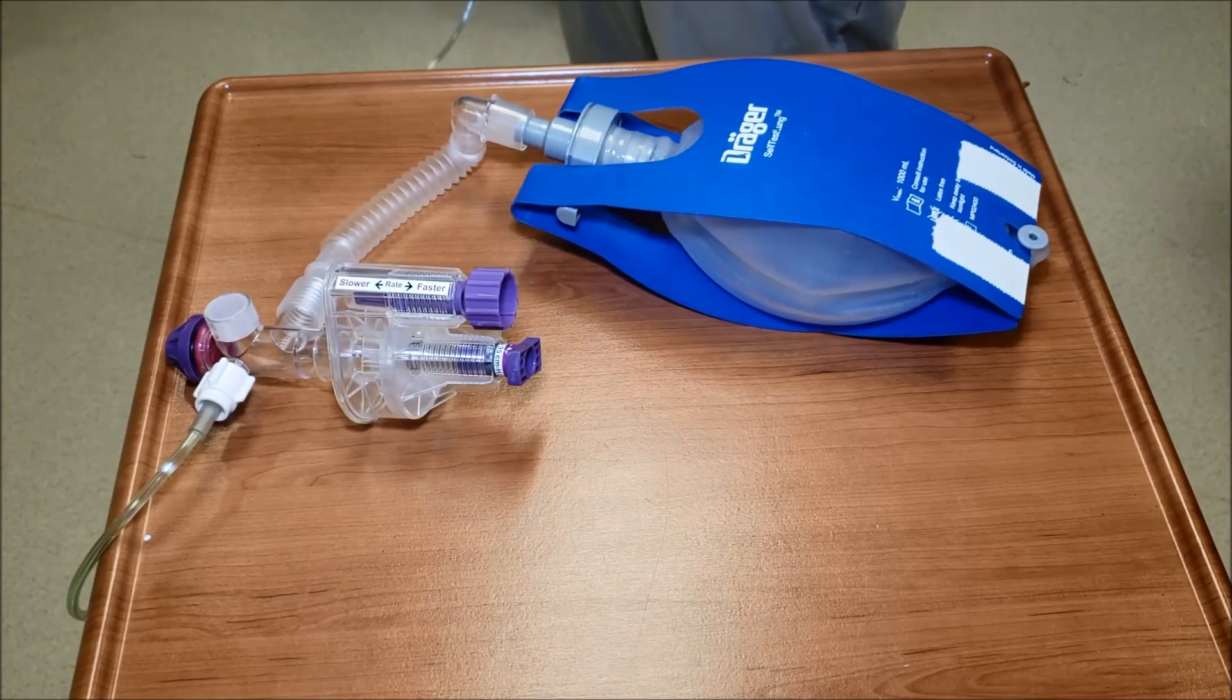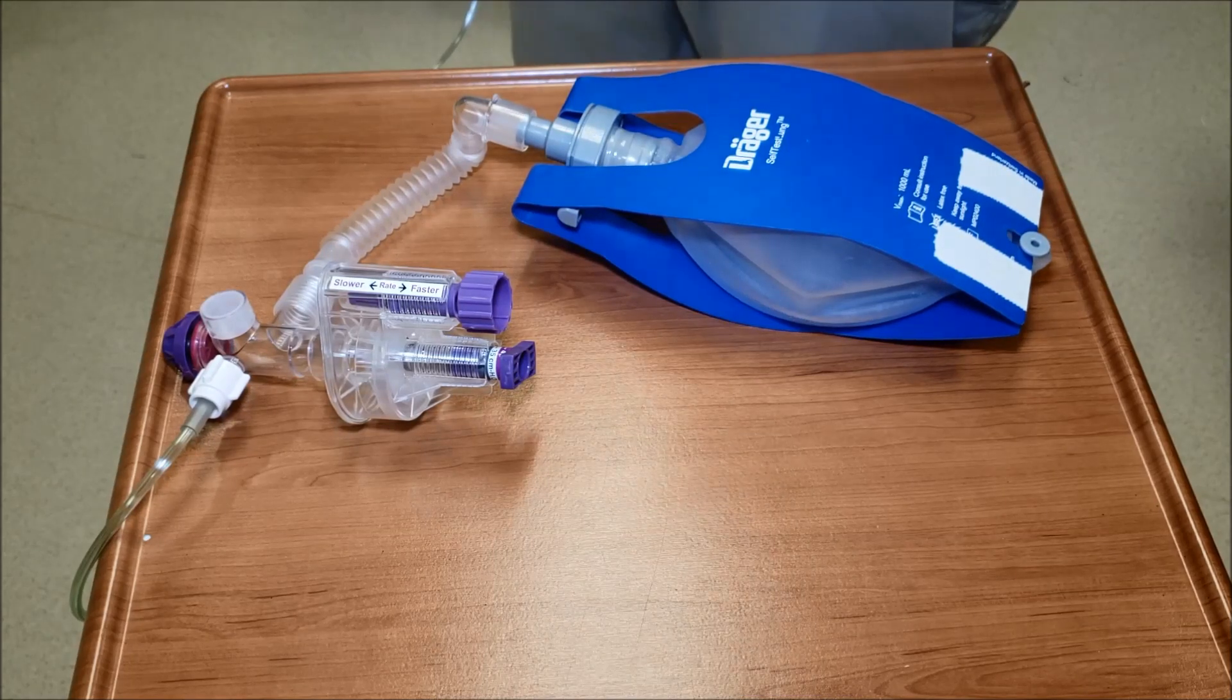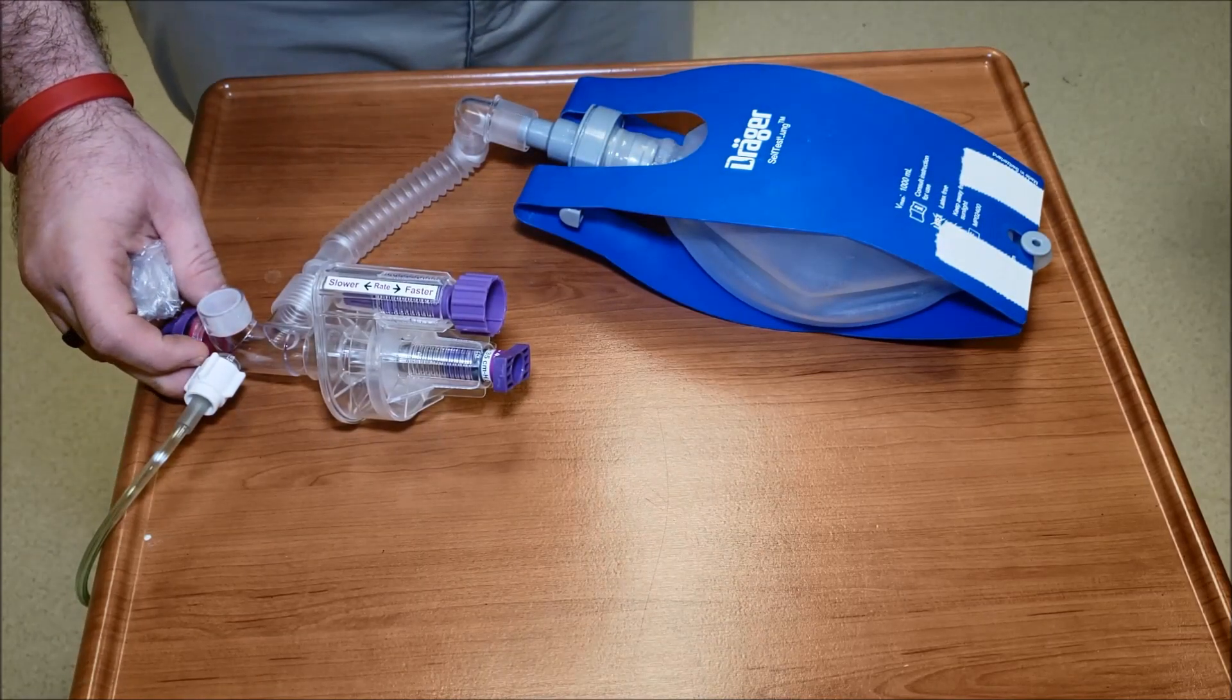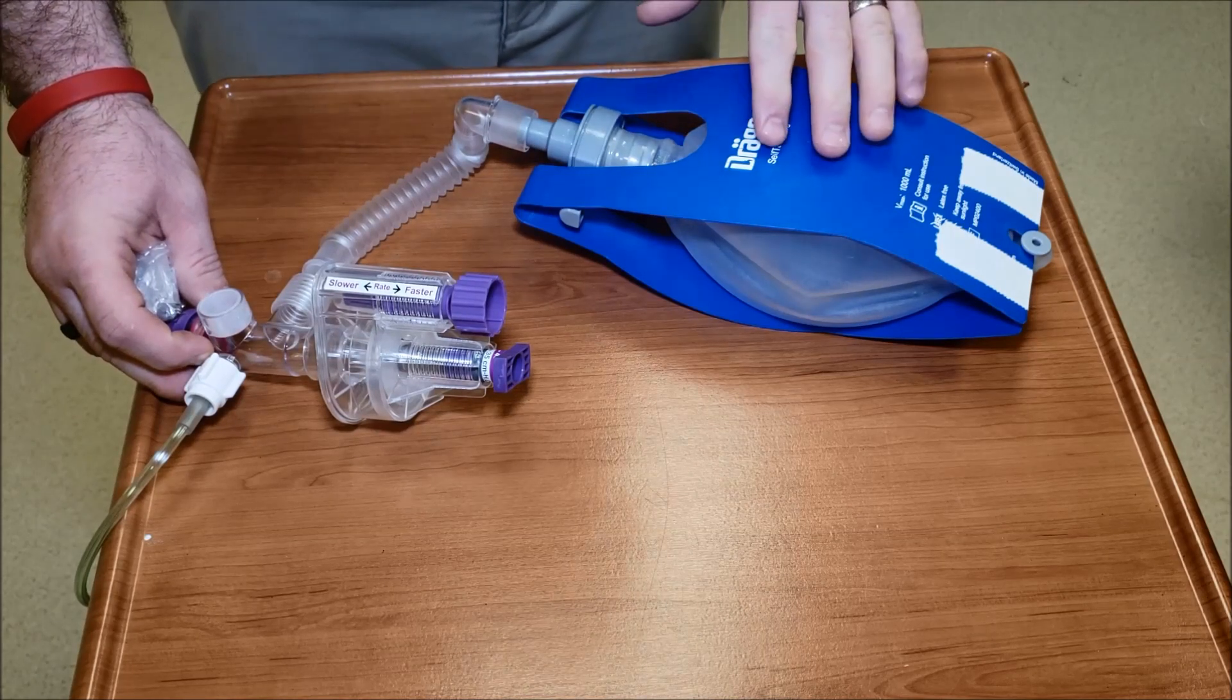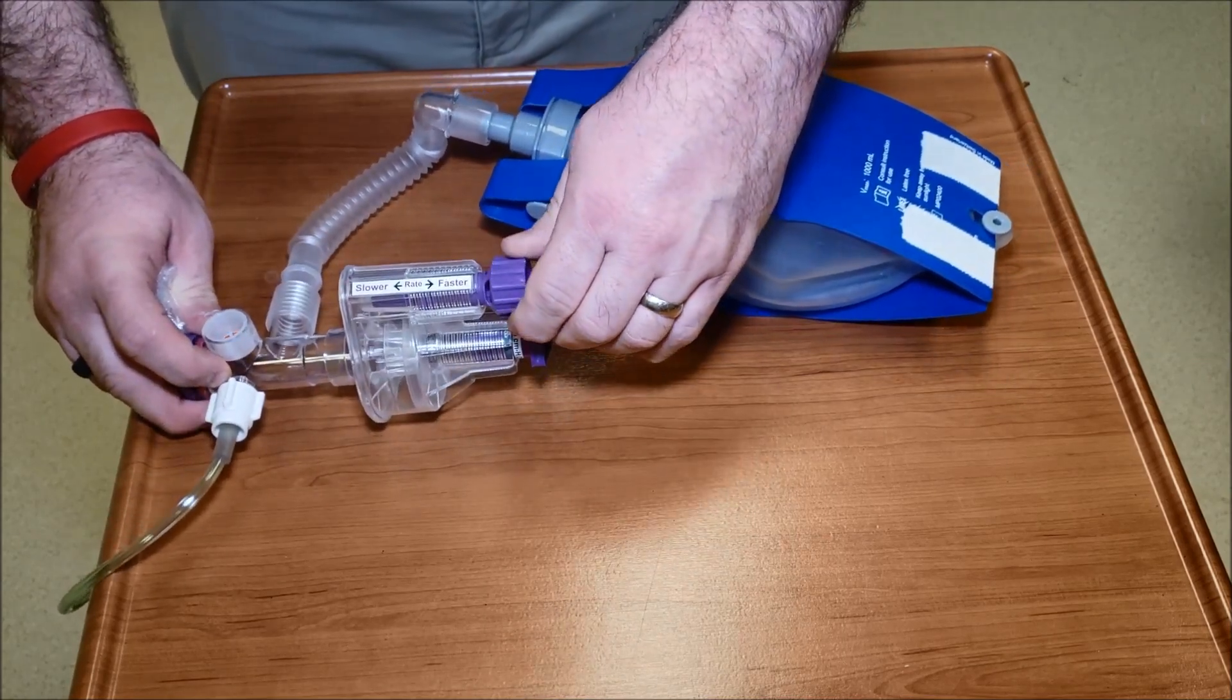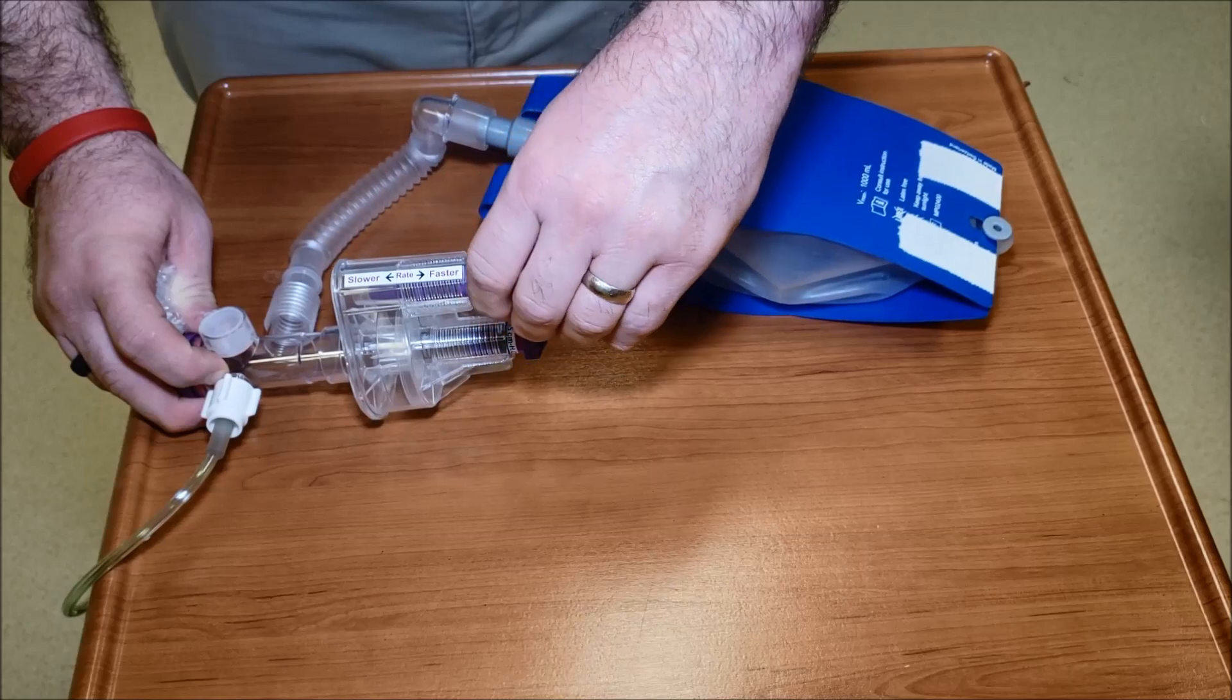Let me turn up my flow a little bit. This is closer to 25 liters per minute. This is really what you're going to need, and I'm sorry for the increased sound, but this is really what you're going to need for your patients because you're going to need that extra flow going through the system to wash out CO2.